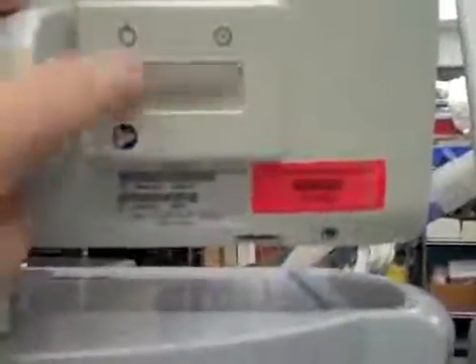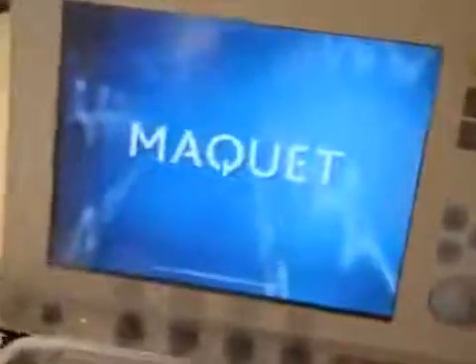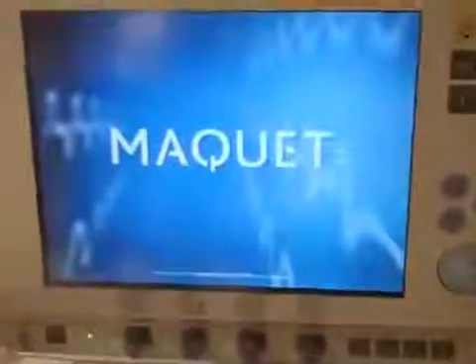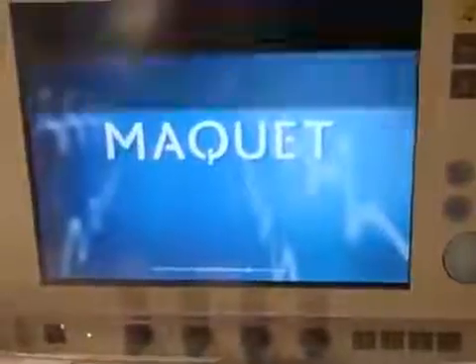Around the back there's a little window. Flick the monitor on — you'll see when it's on that a little protective covering goes over it. Come back to the front and you'll see your screen firing on. It's going to go through a software check, and then it will prompt you. It's asking if you want to do a pre-start check, and we're going to say yes.